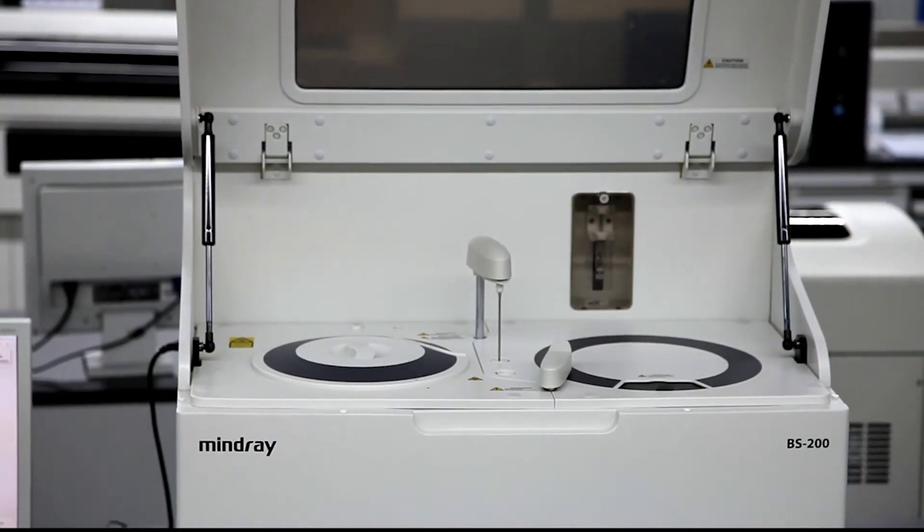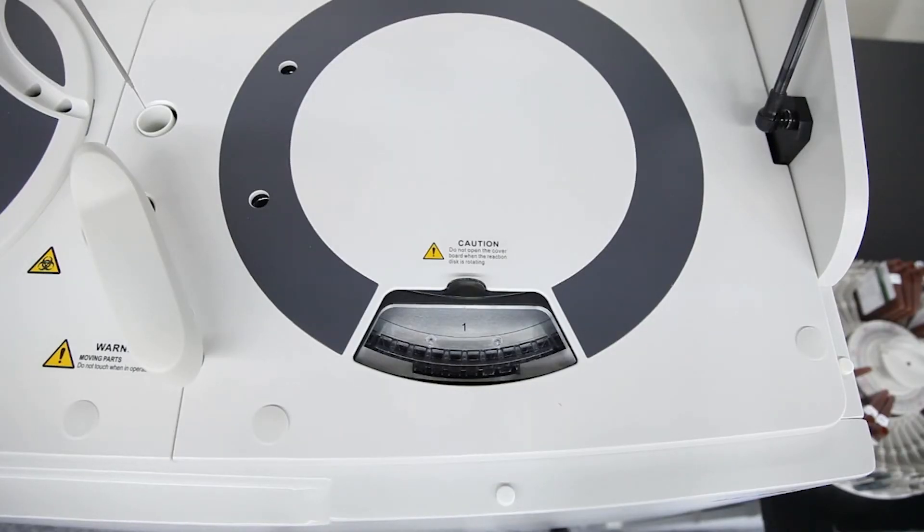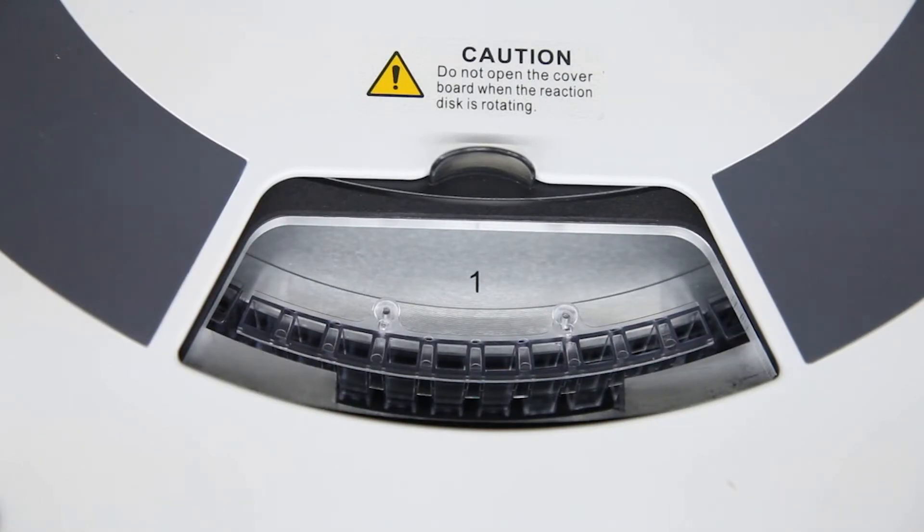The BS200 analyzer is a viable and profitable clinical solution for today's laboratory whose annual test volume is between 30,000 and 200,000 tests.